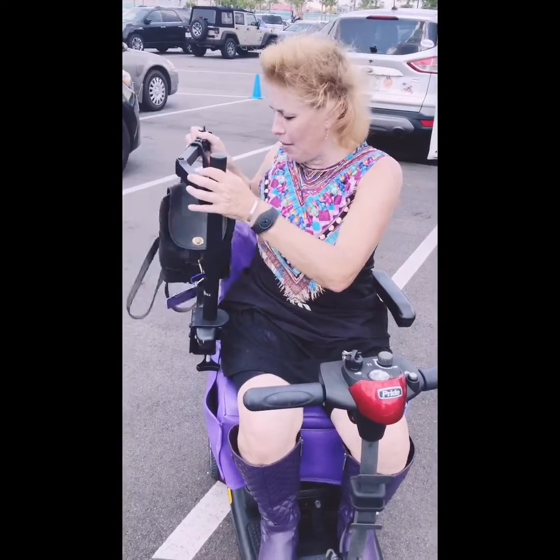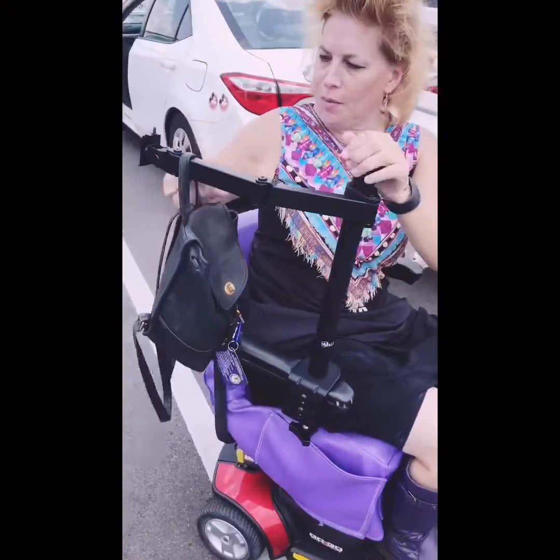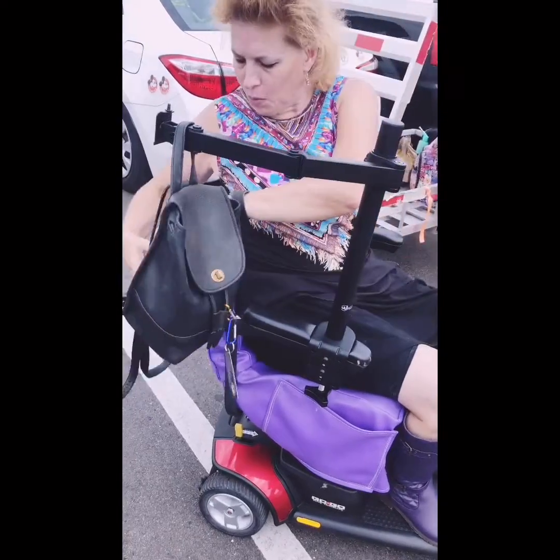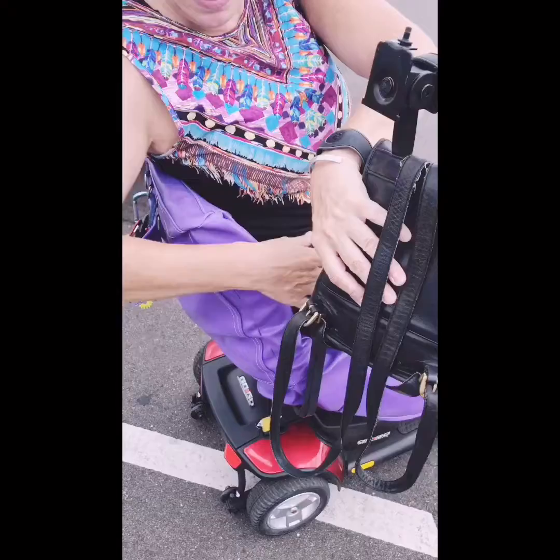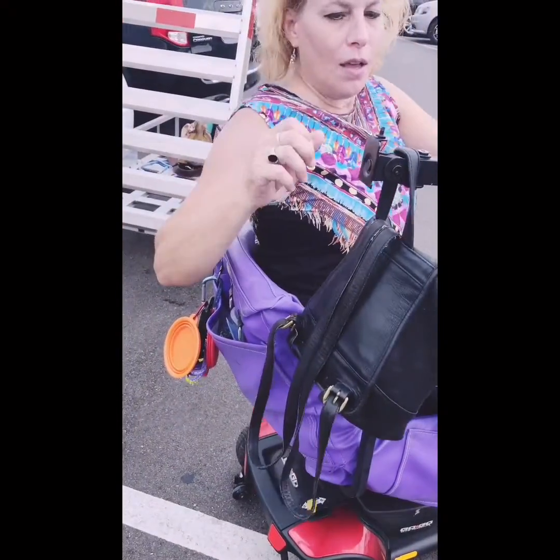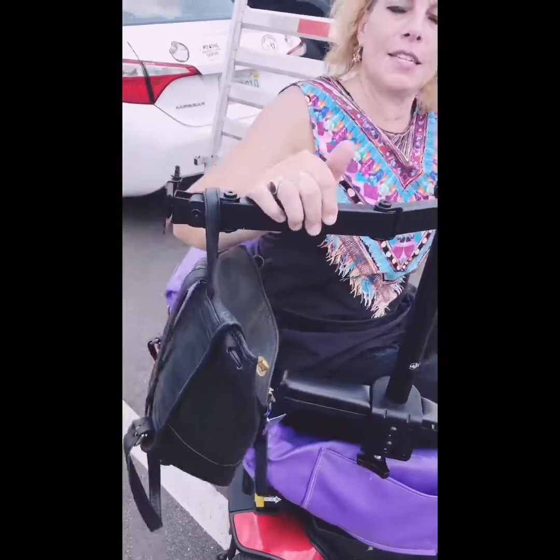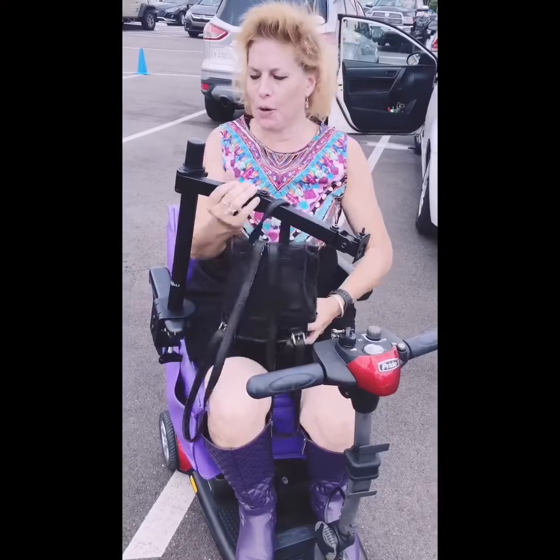So I'm trying to figure out a way to use a swivel arm so you can hang your stuff. On a wheelchair, there's usually a bar or something back here where we're going to mount this, and hang your purse back here — maybe use a loop and swivel. So then you can pull your stuff around and get your stuff out of your backpack or your purse.